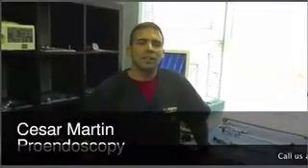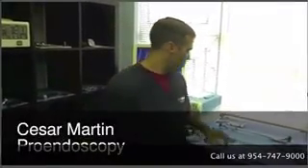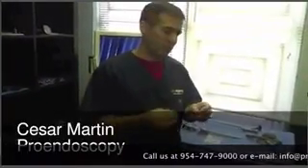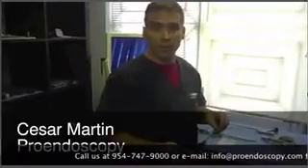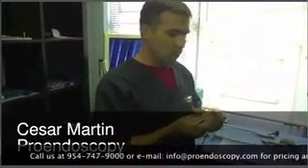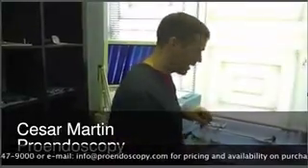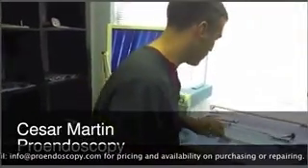Hi, it's Cesar again here with Pro Endoscopy. I'm here to explain to you why your system gets flooded due to either laser or shaver damage. We're responding to an email that a customer sent us, so we want to get into the detail and show you why this happens.